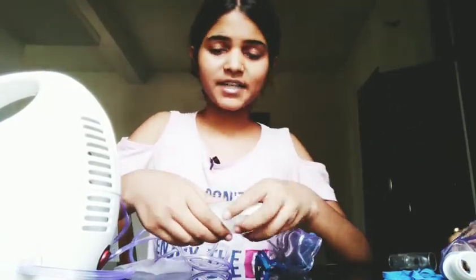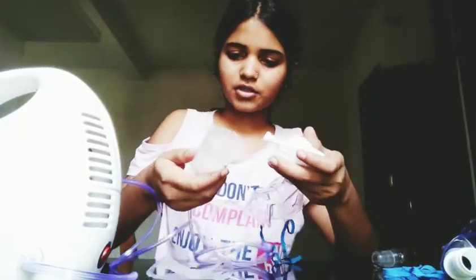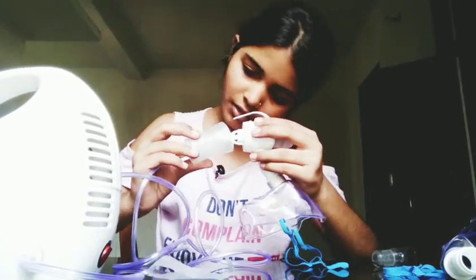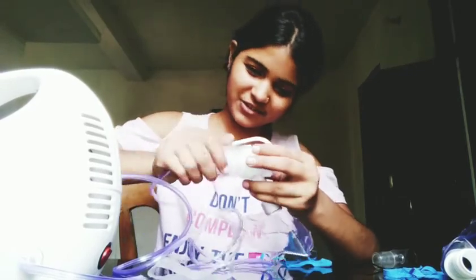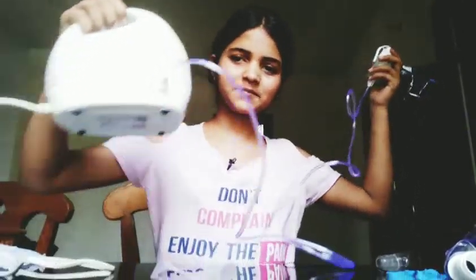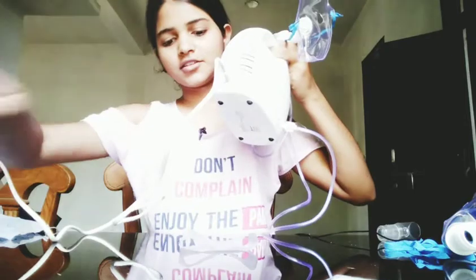There is also medicine which you fill inside the nebulizer cup. You just fill the medicine inside and close it. That's the whole setup — isn't that simple? You connect this into the electric board and that's all. Let's have a last look at the whole connection.